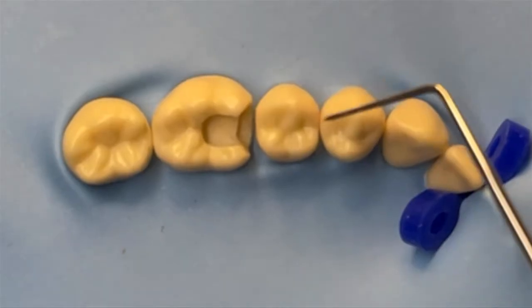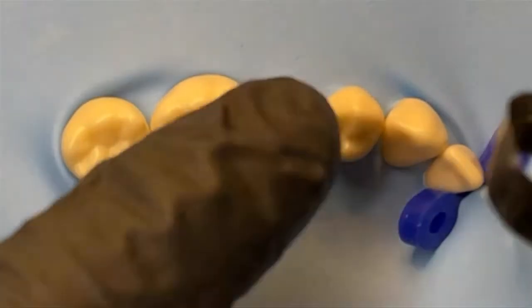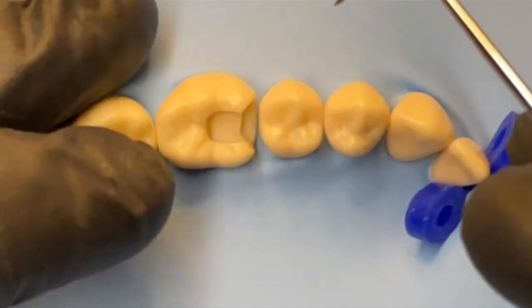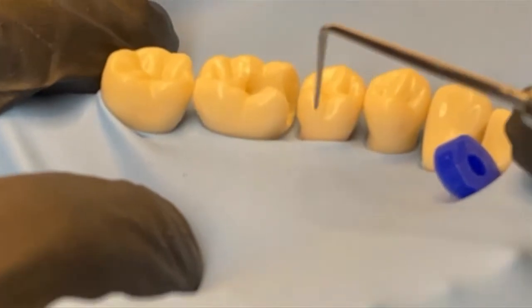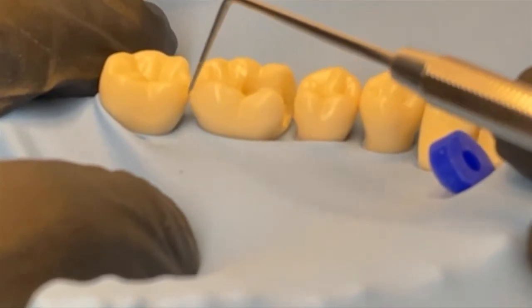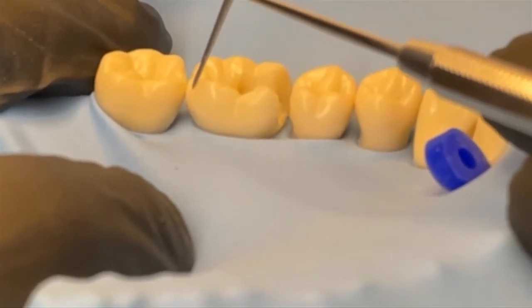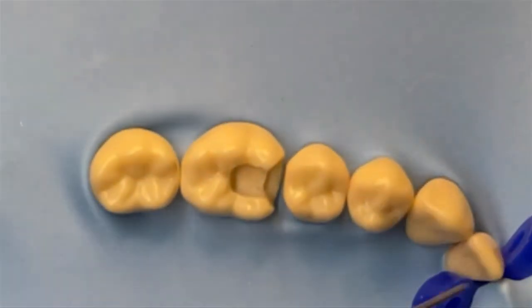The first thing to cover is why bother with sectional bands at all - they're more fiddly, there's more stuff, so what is the point? The goal of any restoration is to put back the form and function of the tooth. When you look at teeth from the side, all teeth should curve and have a contact point in the middle, then curve back into the marginal ridge area, creating an easy area to floss and clean, and making the marginal ridge very good at resisting fracture. You're aiming for that contact point to be curved and low.